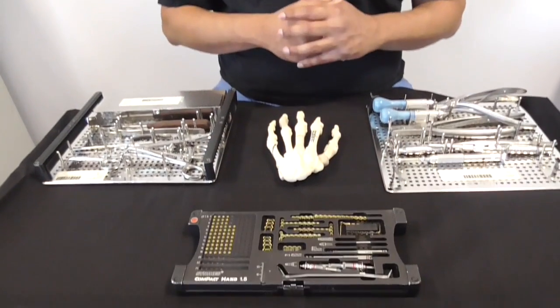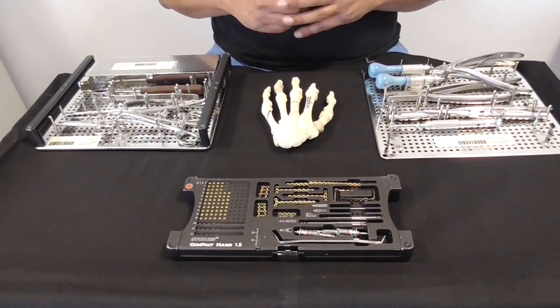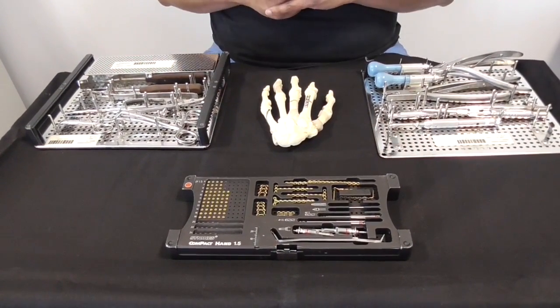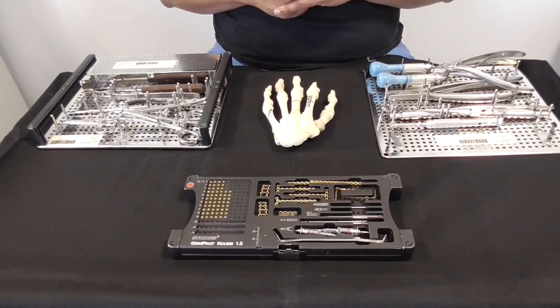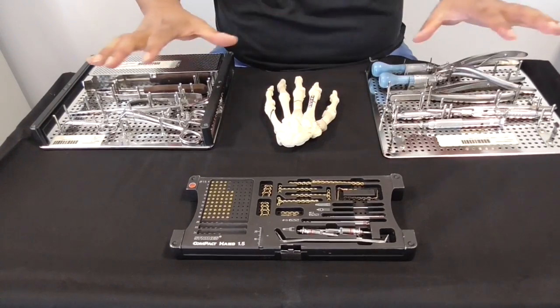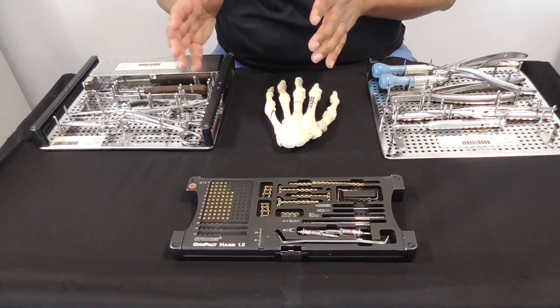Before you do any operation, you should know your kit because you don't know who your scrub nurse can be or if they're familiar with your kit. As a surgeon, the responsibility is yours. As a scrub nurse, you may also want to acquaint yourself with it. This is a fairly standard kit that we use in our hospital, and we're going to go through the different bits of it in a sequential fashion.